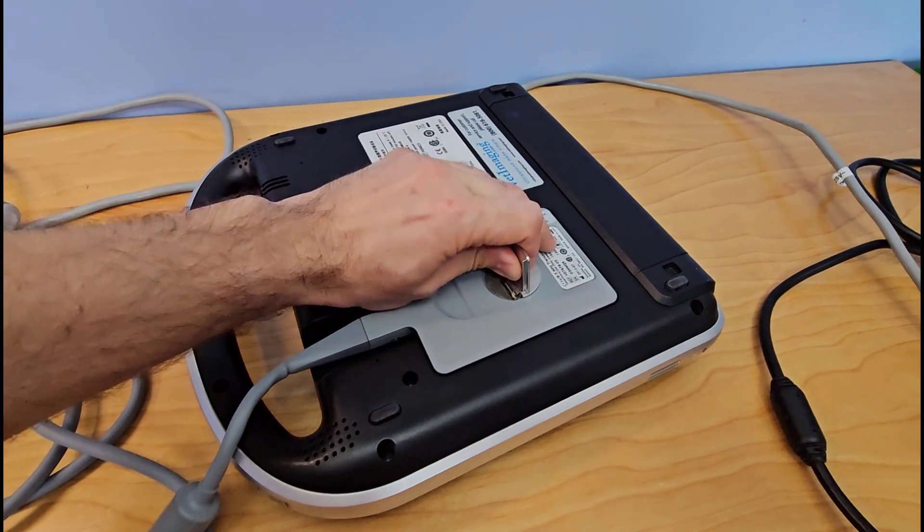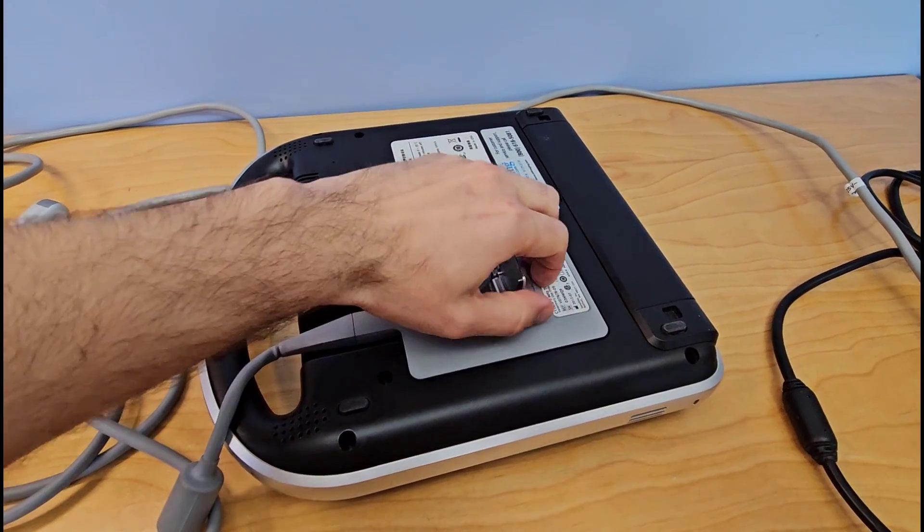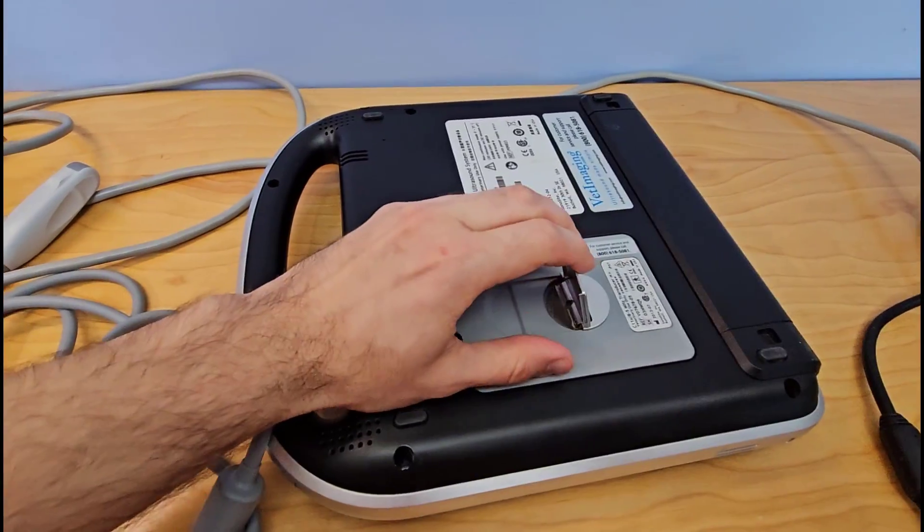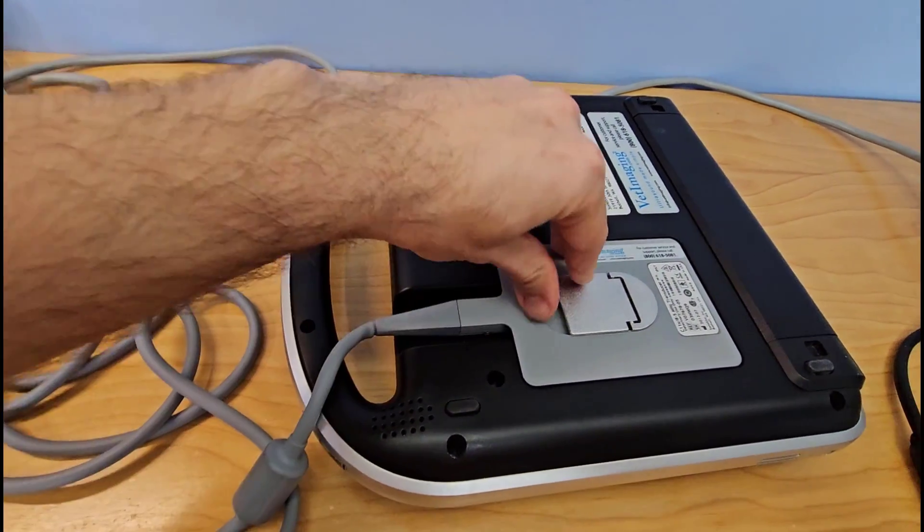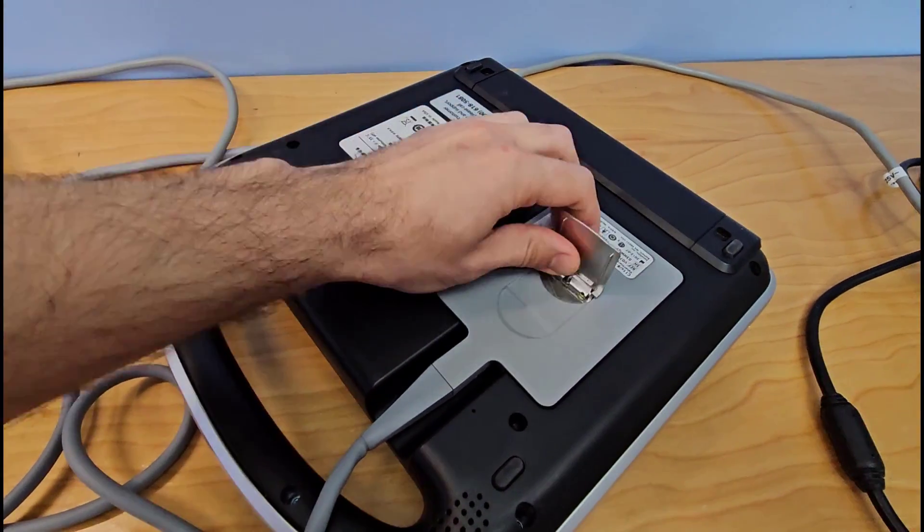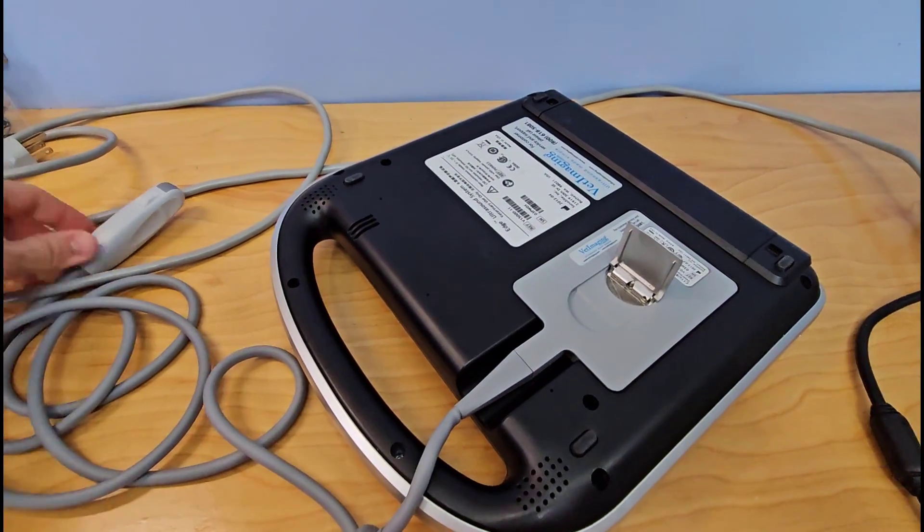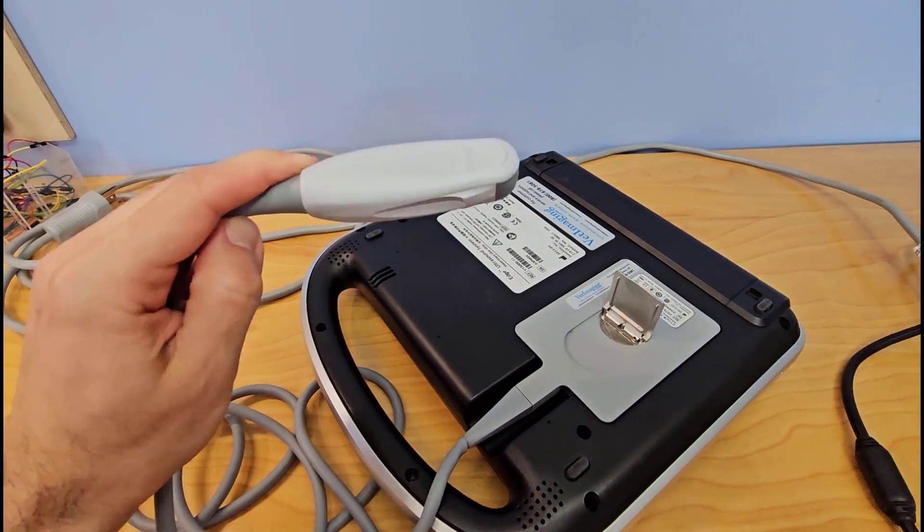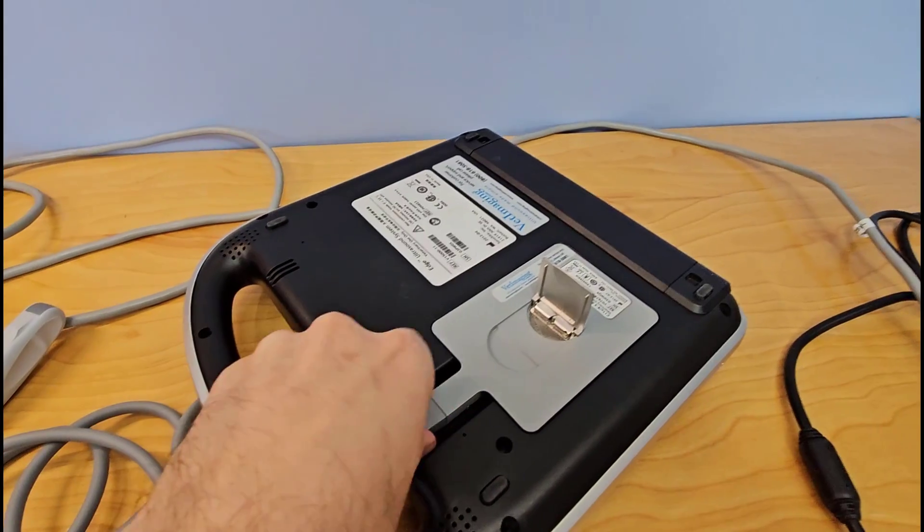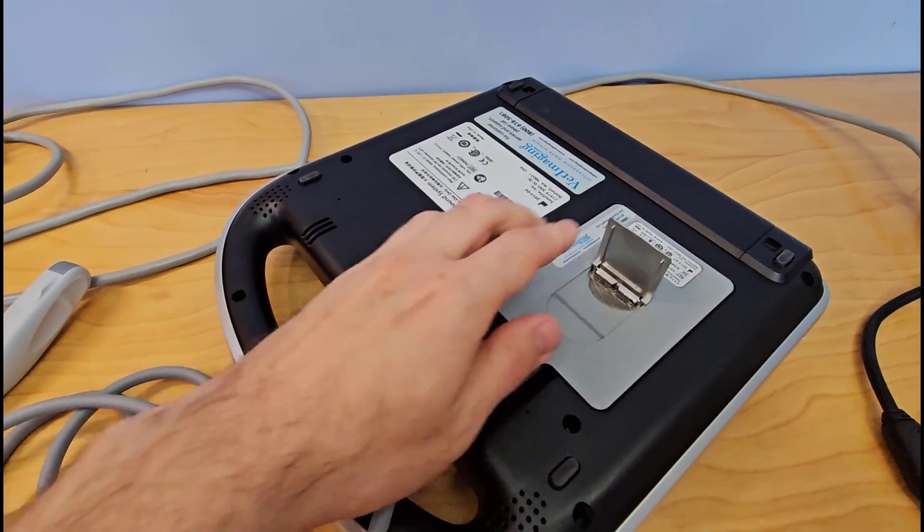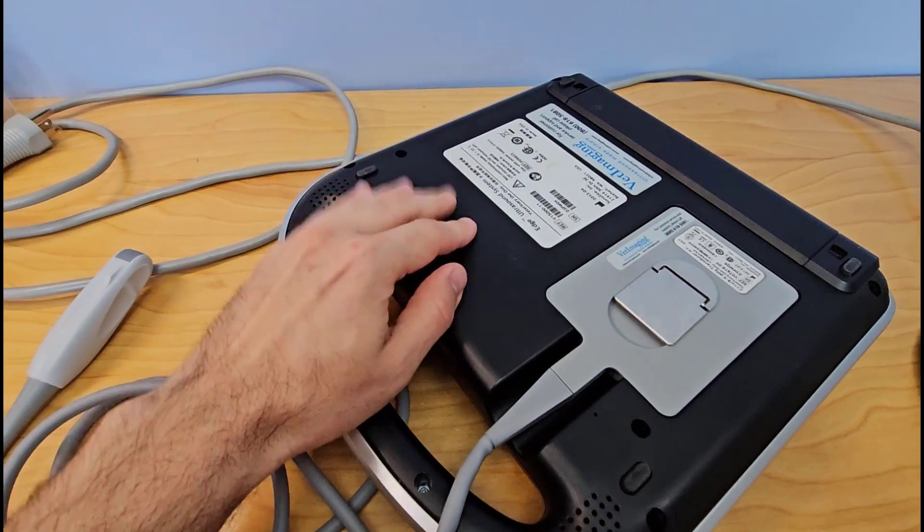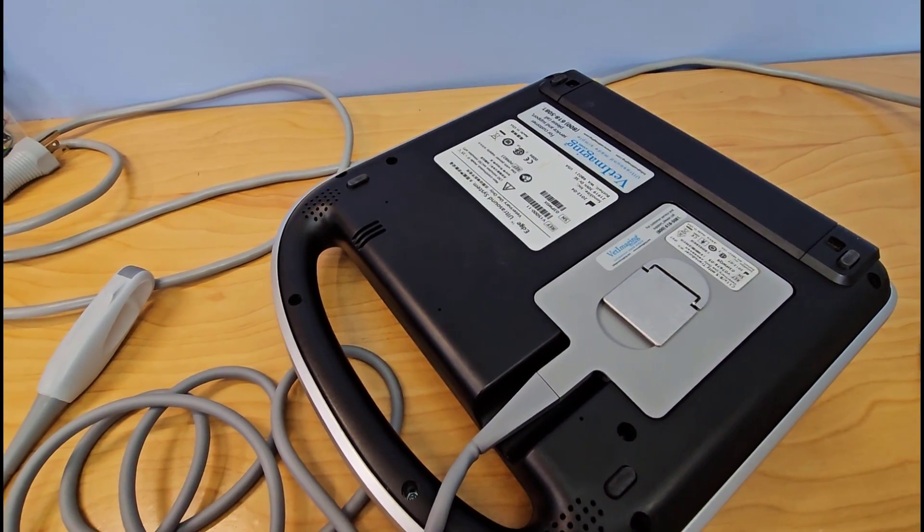There's also this thing. I'm not quite sure how this comes out. My wife is a veterinarian, which is why I wind up repairing broken veterinary equipment sometimes. This looks like the actual wand thingy that you do the ultrasound with, and this gray thing here looks like it comes out, so that may or may not be in the way. I'm going to leave that in place for now and try to get this black part of the case off.